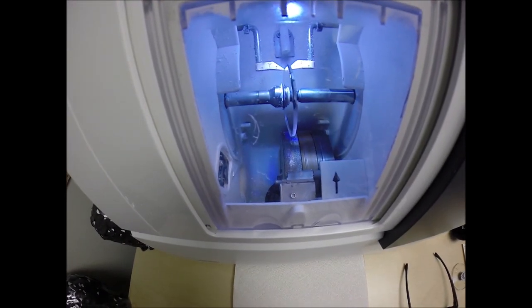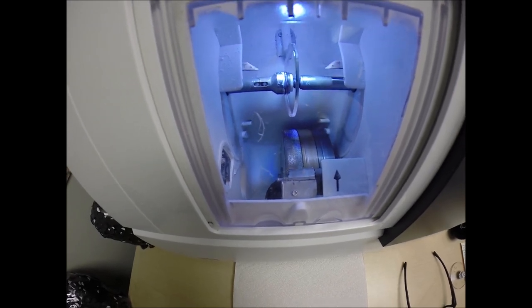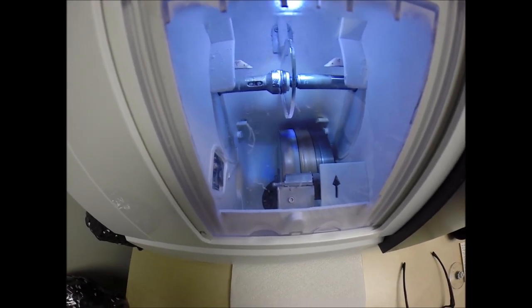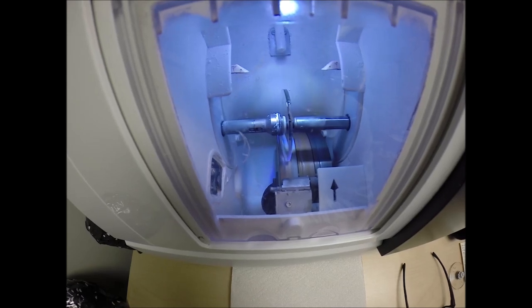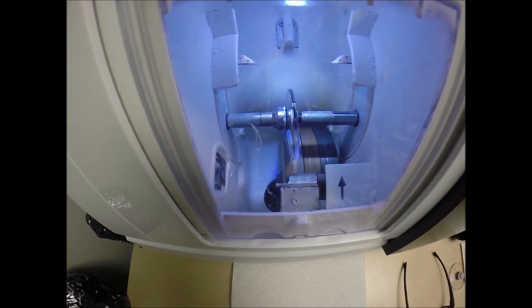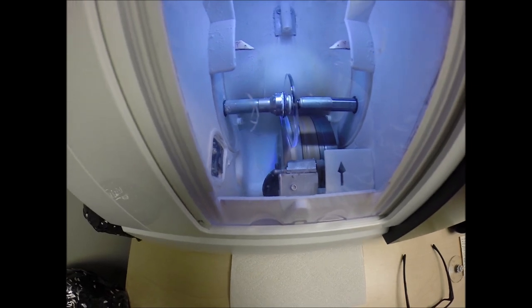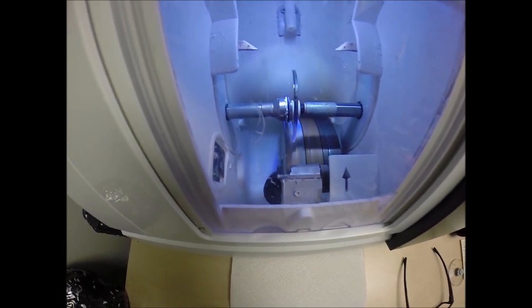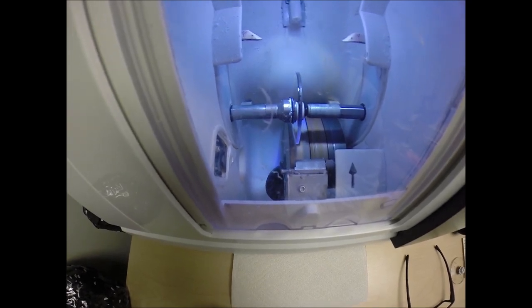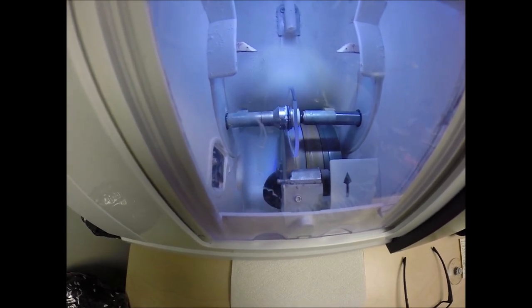What you can see is it's tracing the shape of the right lens. In the second go-round, it's measuring the thickness of the lens at every point to know exactly and precisely where to place the bevel so you have the least amount of edge thickness showing, of which with your prescription and this frame you should have none. Now in just a moment you'll see water spraying in the background. That's there to catch the optical sawdust. As it comes off the cutting wheel, polycarbonate lenses cut dry, meaning that no water sprays onto the lens while it is cutting. However, plastic, high-index plastic, and Trivex cut wet. Water does spray onto those lenses for the duration of the cutting cycle. Now water will spray onto your lens, but only for the last 20 seconds to wash away any optical debris that you may see beginning to form on the edge of your lenses.